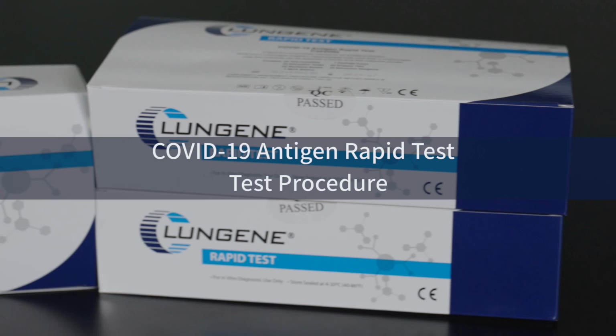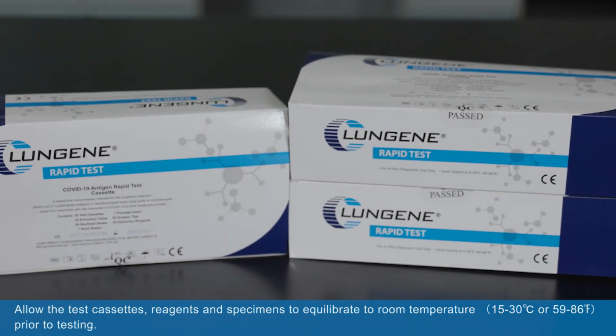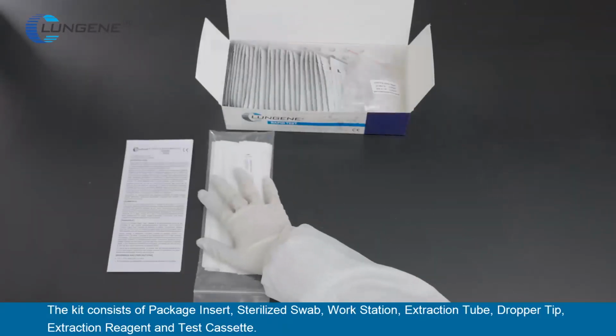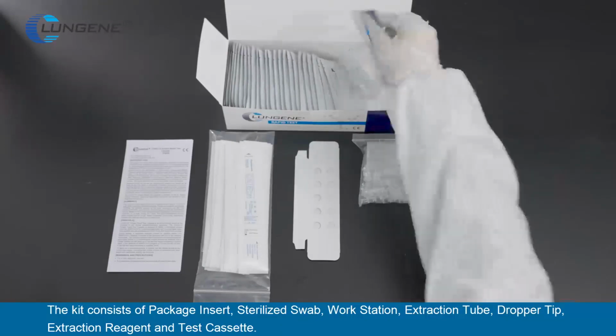COVID-19 antigen rapid test procedure. Allow the test devices, reagents, and specimens to equilibrate to room temperature prior to testing. The kit consists of package insert, sterilized swab, workstation, extraction tube, dropper tip, extraction reagent, and test cassette.